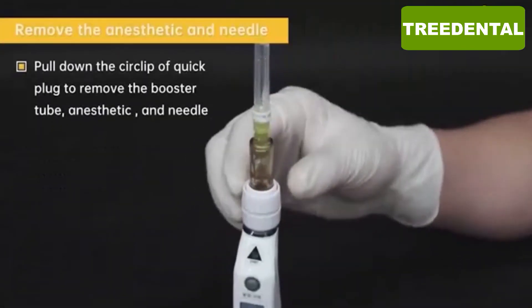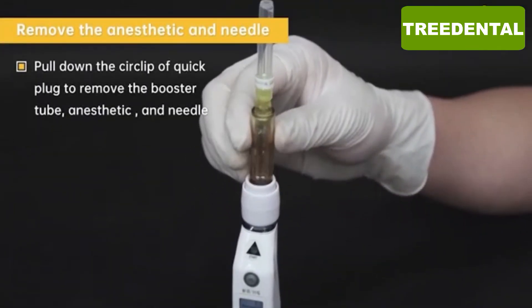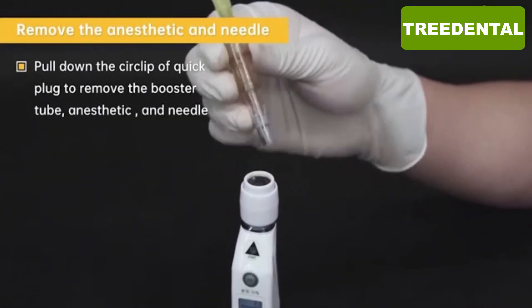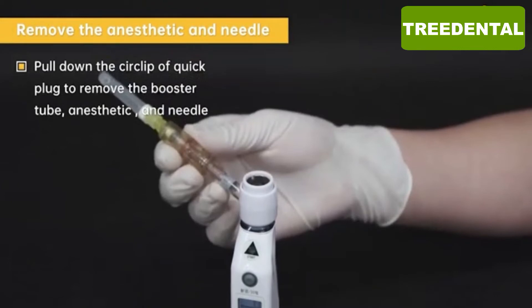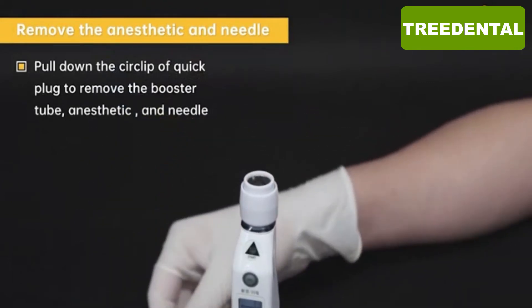Pull down the circlip of the quick plug to remove the booster tube, anesthetic, and the needle.